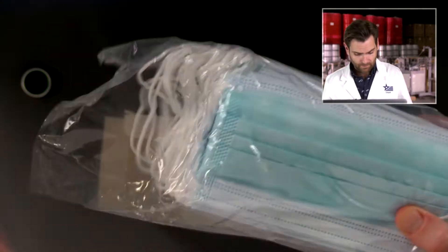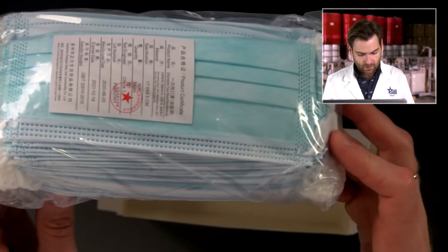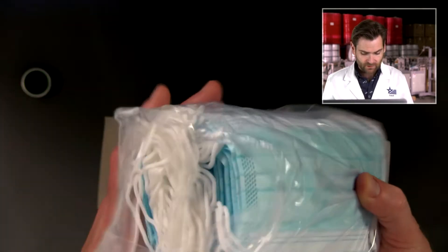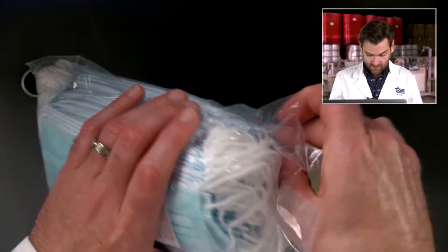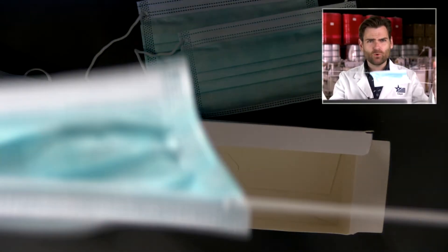As I've said many times before, I don't like it when a mask bag is just kind of flopping open like this, because smells can get in, or kids with grubby fingers can get in there — especially at my house. Let me take this out and try it. Oh, that broke really quickly.